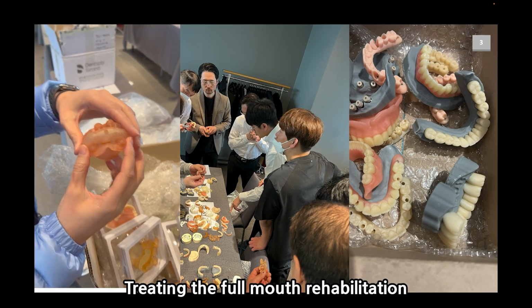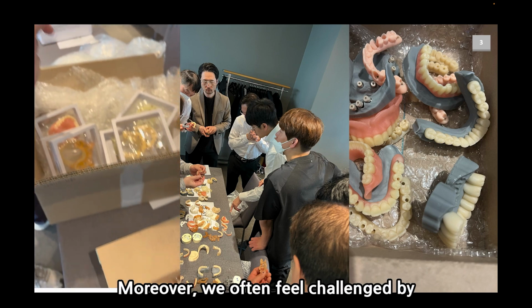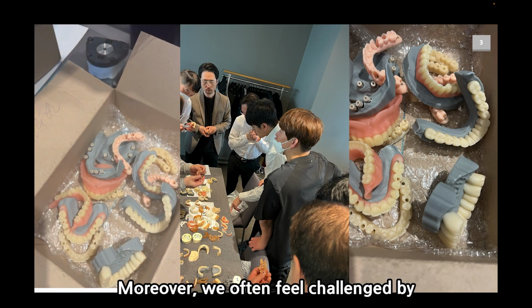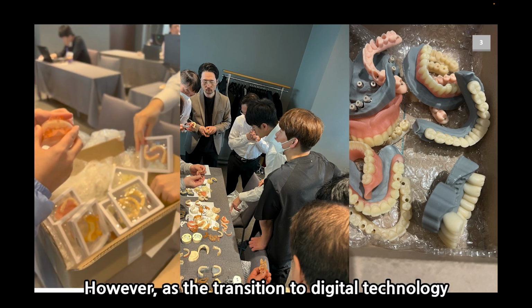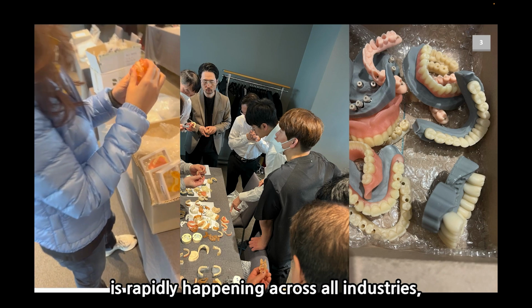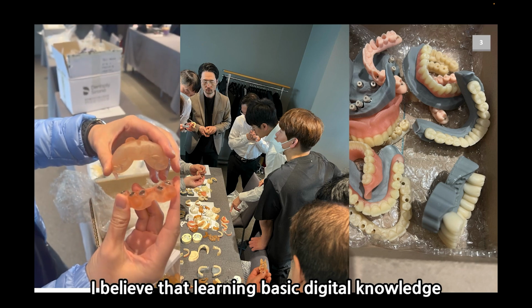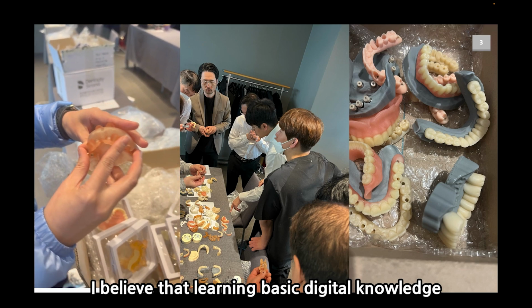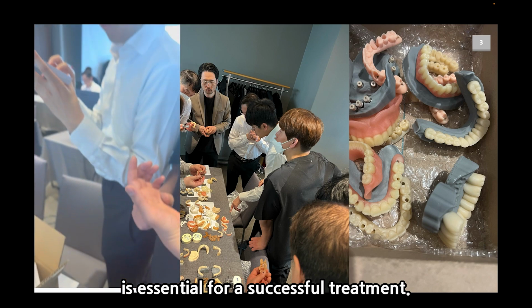Treating the full mouth rehabilitation involves many considerations. Moreover, we often feel challenged by new digital workflows. However, as transition to digital technology is rapidly happening across all industries, I believe that learning basic digital knowledge is essential for a successful treatment.